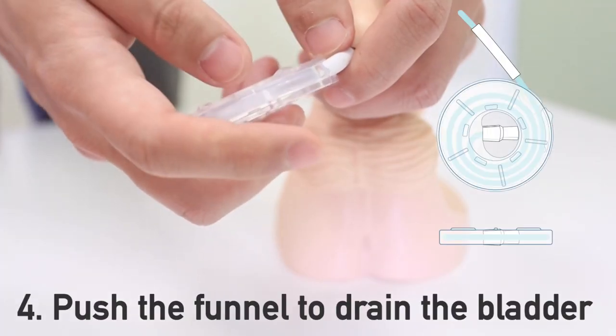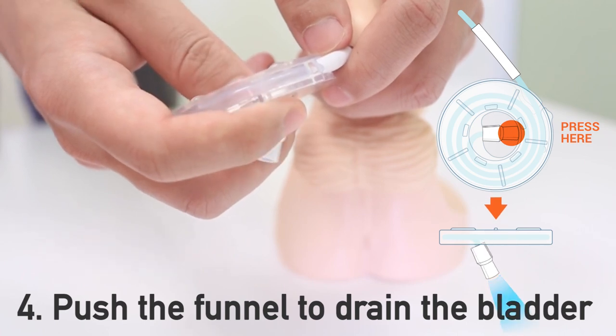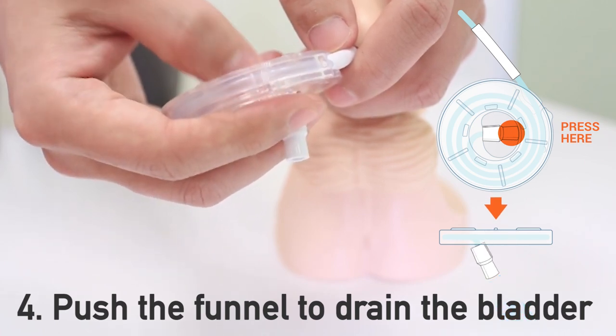When you're ready to drain, aim the catheter in the desired location and unplug the funnel by pushing it outward.